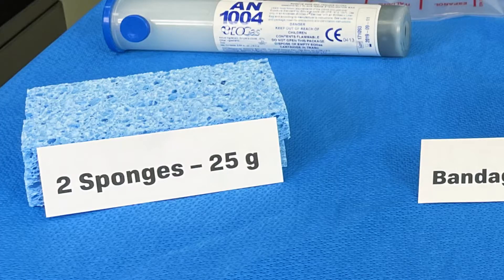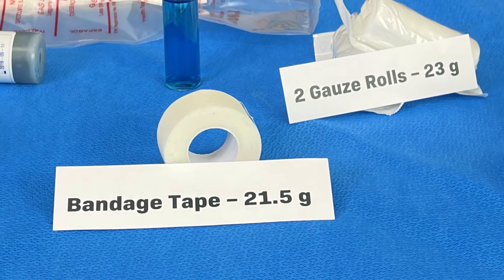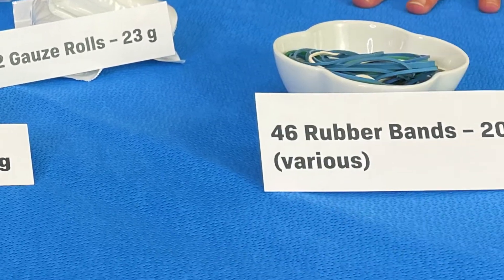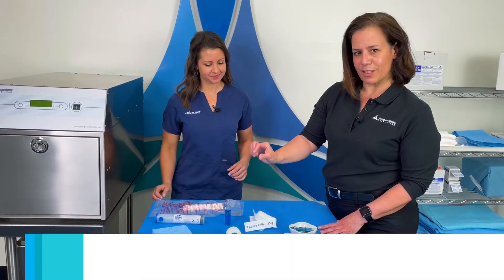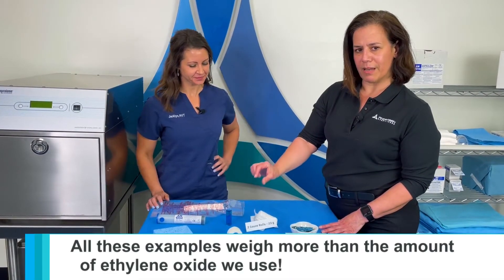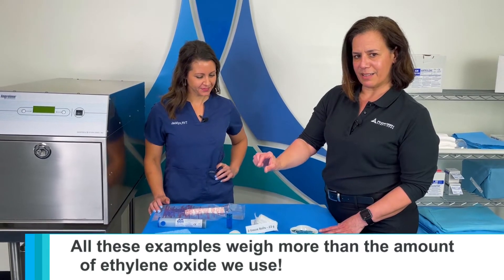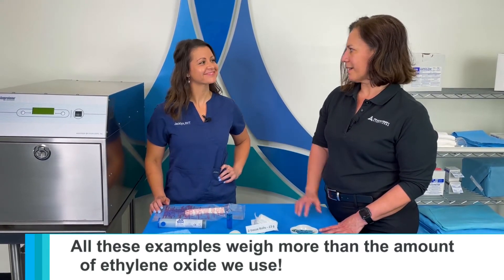That's like two sponges, some other items, rubber bands. So you can see exactly the small amount of ethylene oxide that is being used in your sterilization cycle.